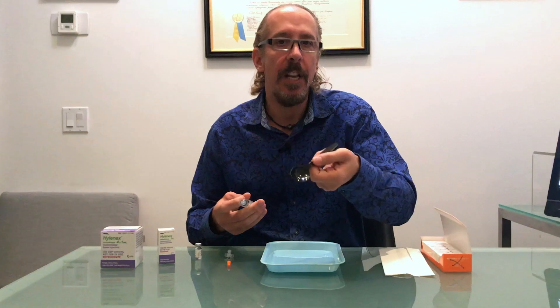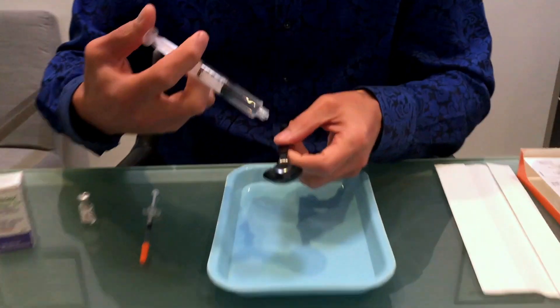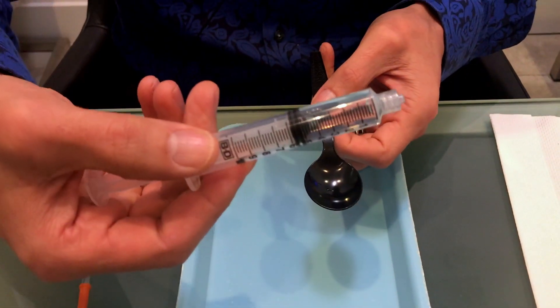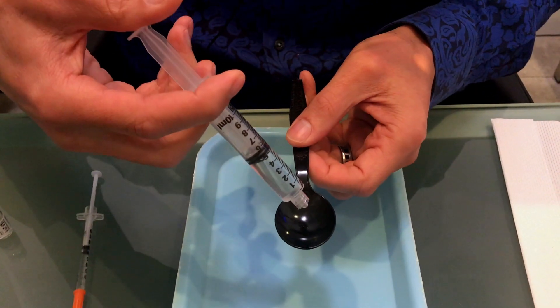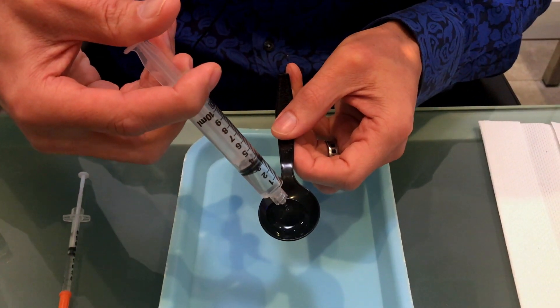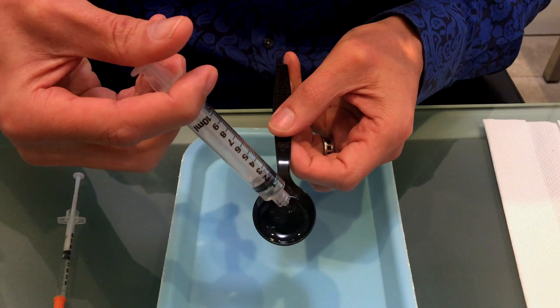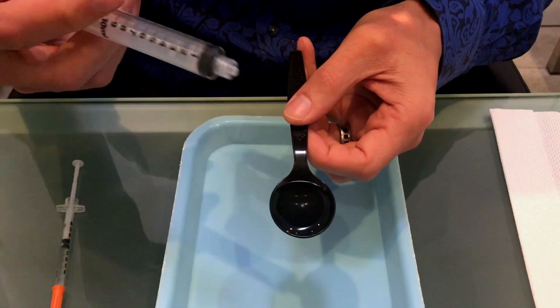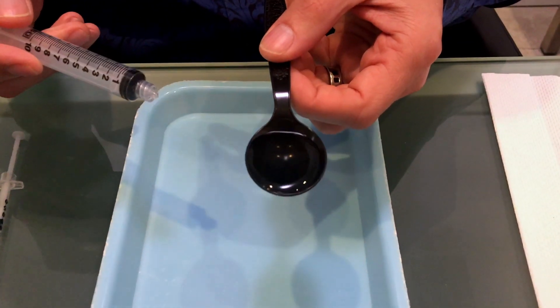So here's a teaspoon, let's come on over here and I've drawn up five cc's of saline and I want to show you so five cc's which is five syringes of typical filler, it just fits in a teaspoon. Do you see that?